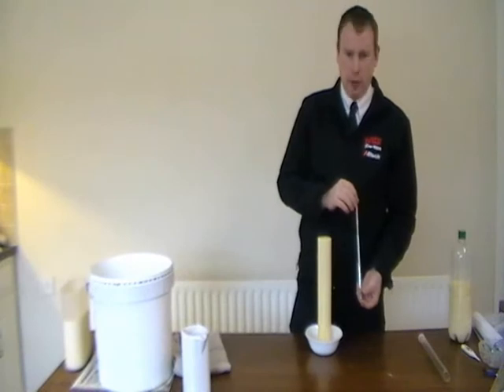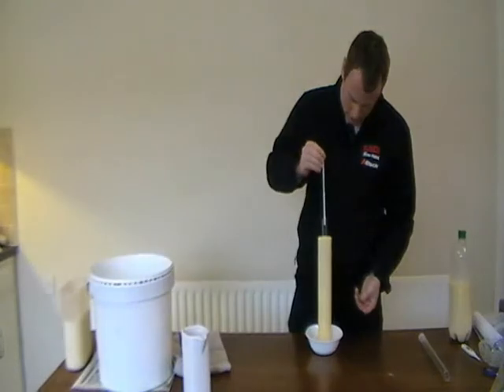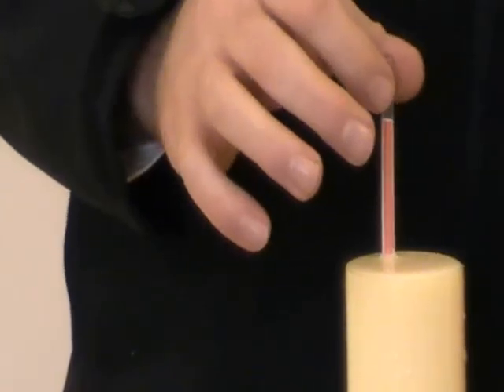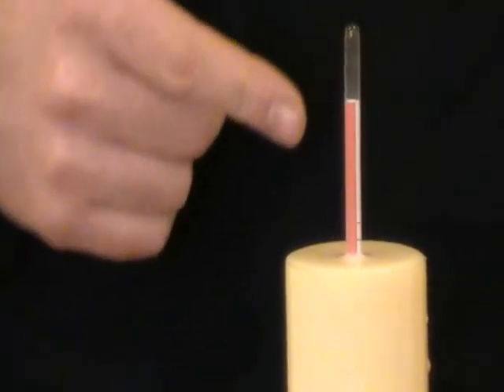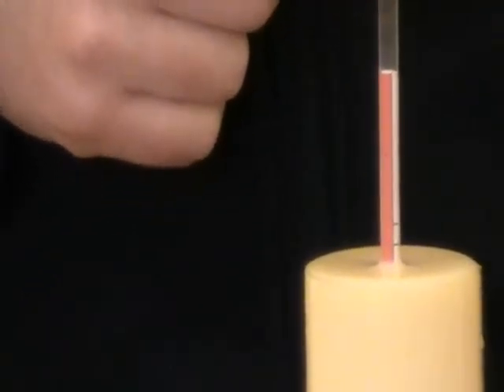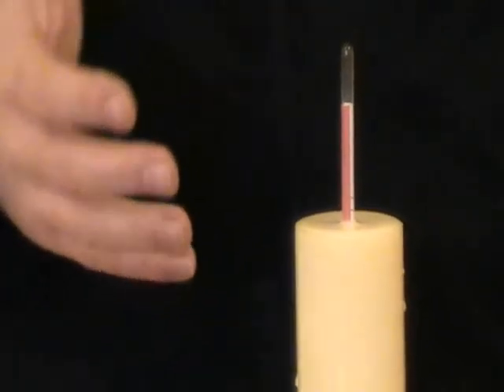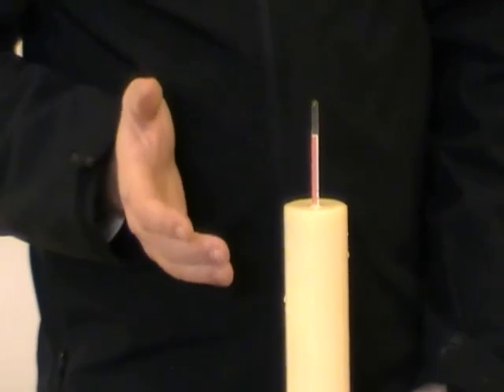Here's a different sample of colostrum — let's see what result we get now. As we can see, this colostrum sample is testing in the red. Obviously the level of immunoglobulins is too low; the specific gravity of the sample is too low and the colostrum is sinking. This isn't good enough for feeding to calves for first feed, so it can either be dumped or fed to older calves for milk.